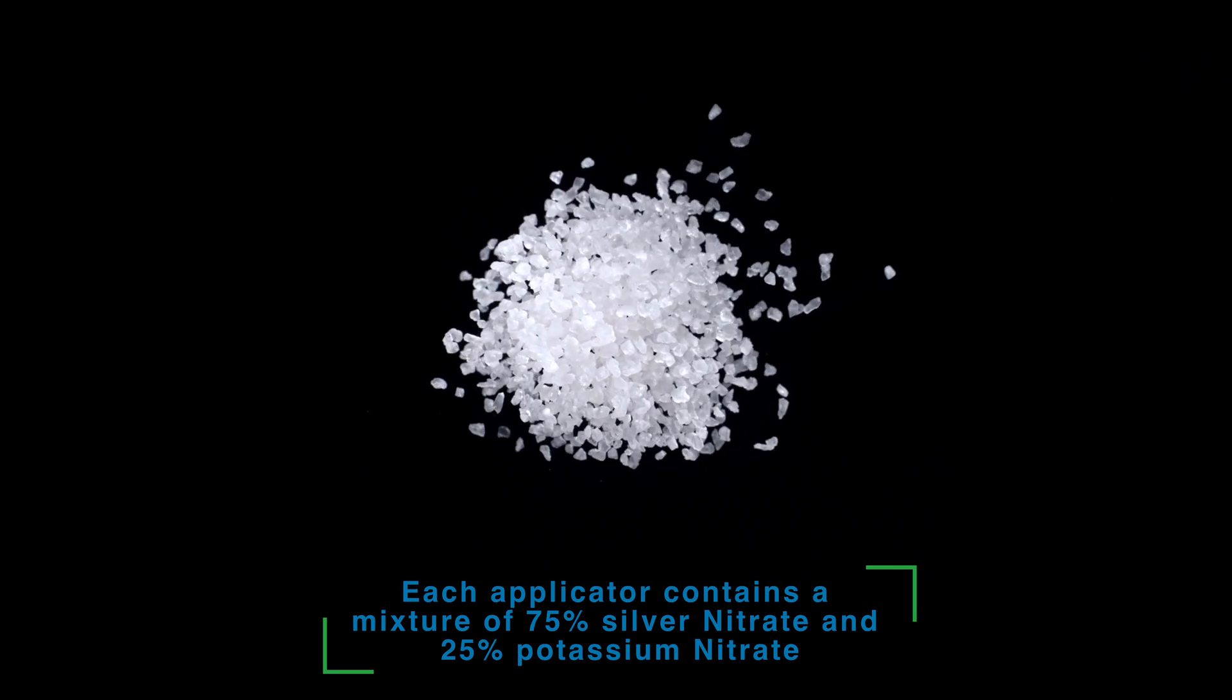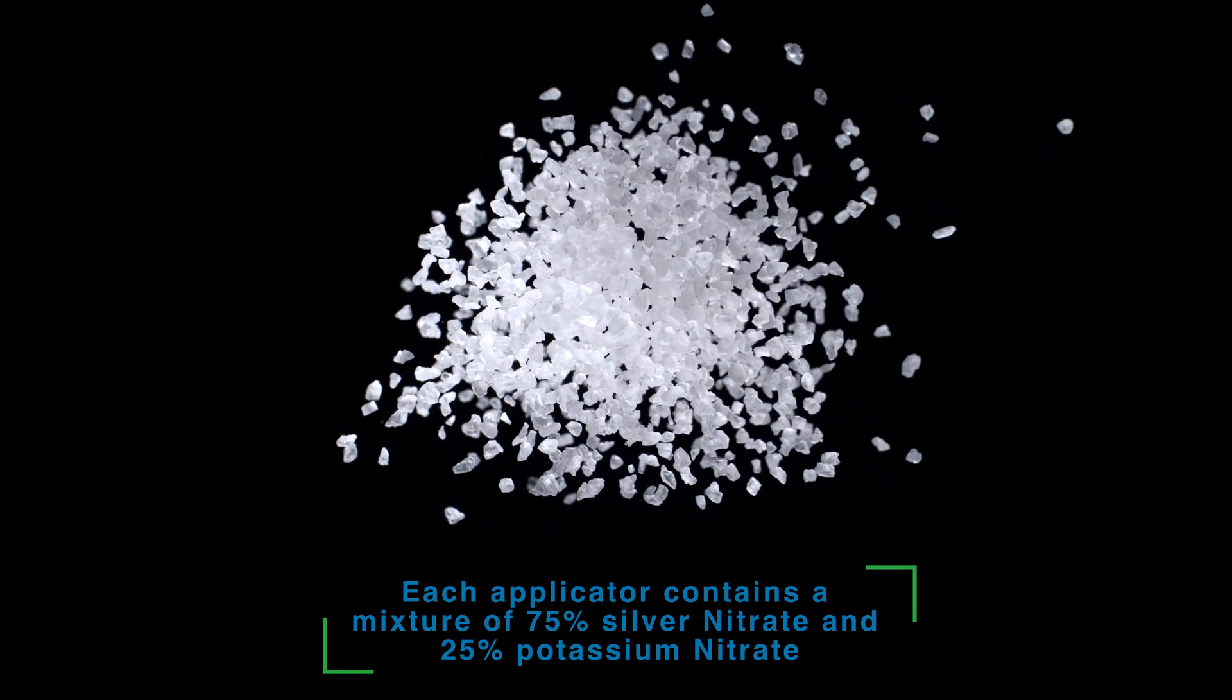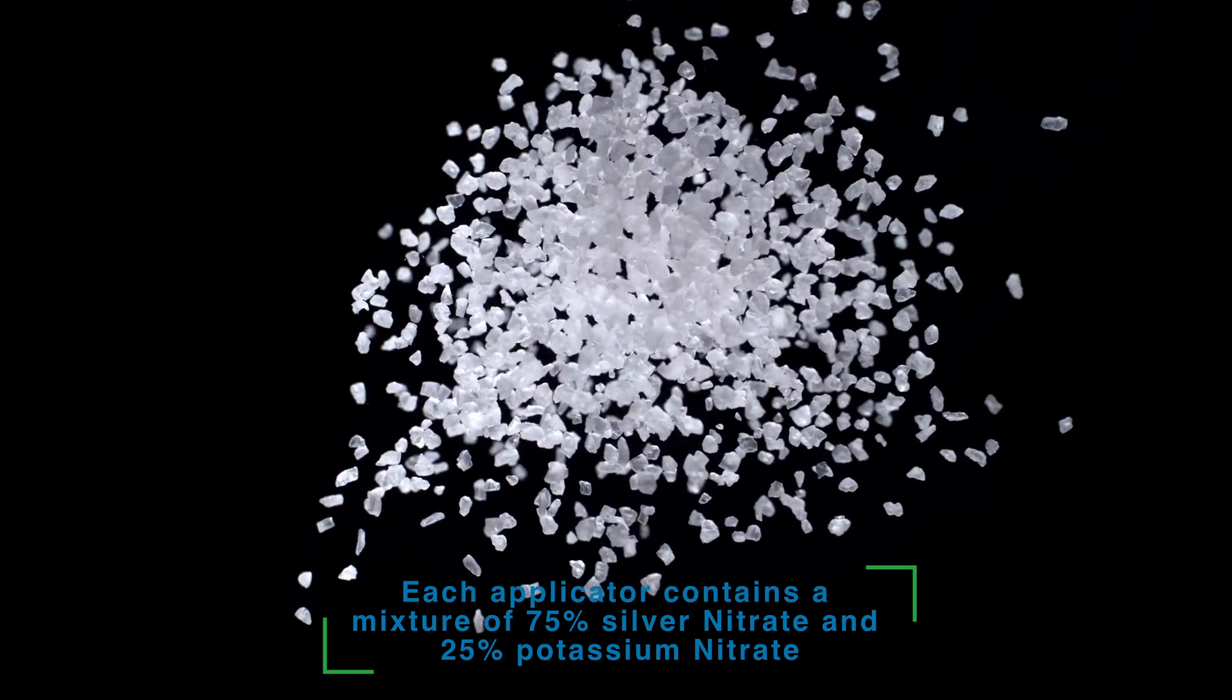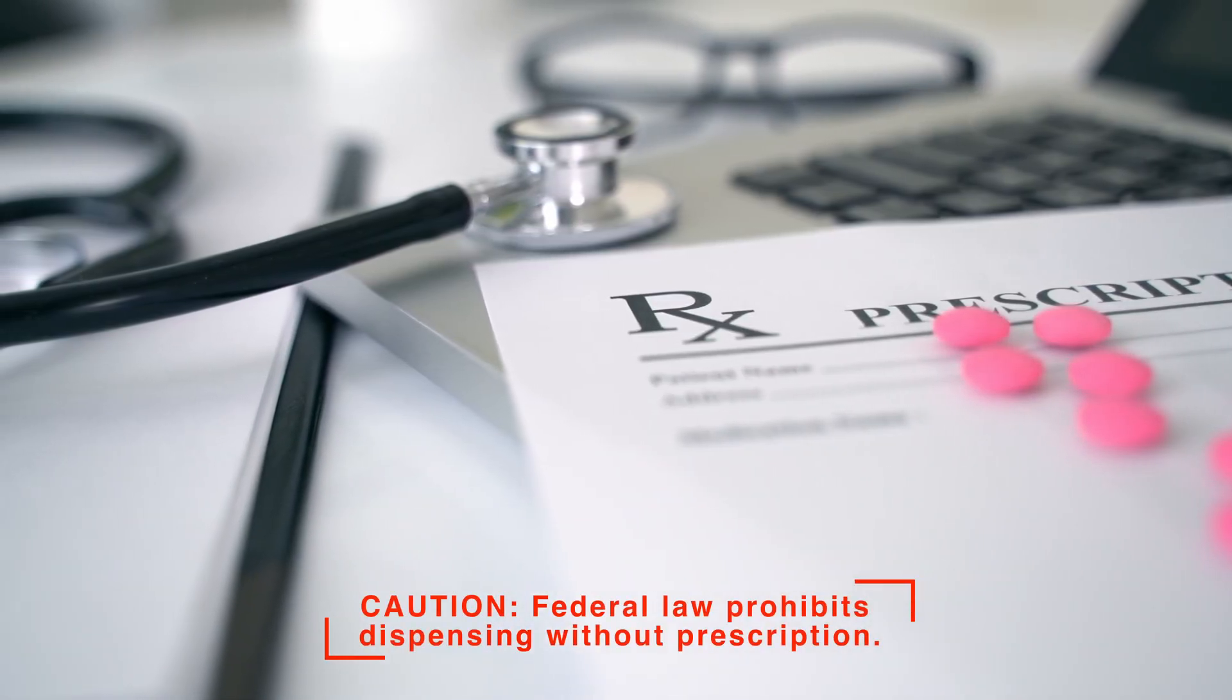Each applicator contains a mixture of 75% silver nitrate and 25% potassium nitrate. Federal law prohibits dispensing without prescription.